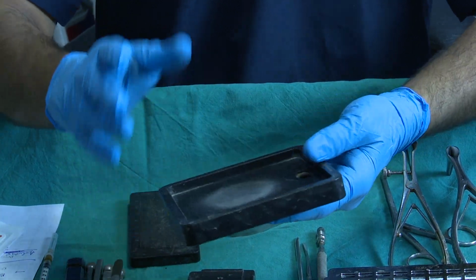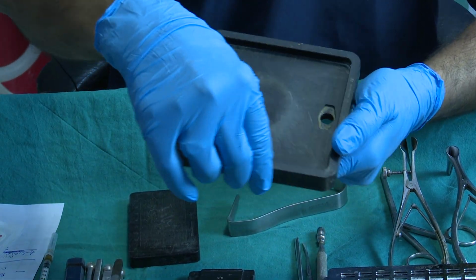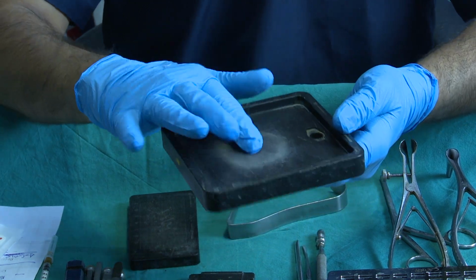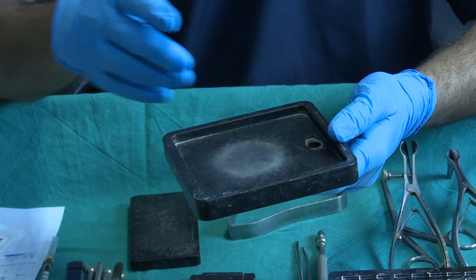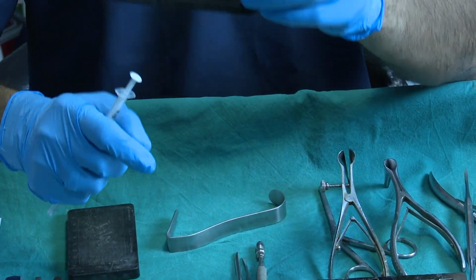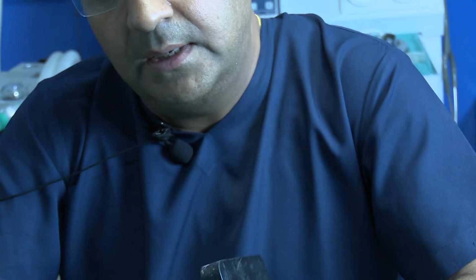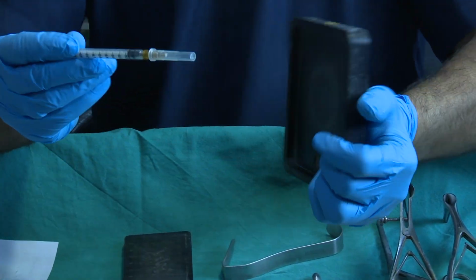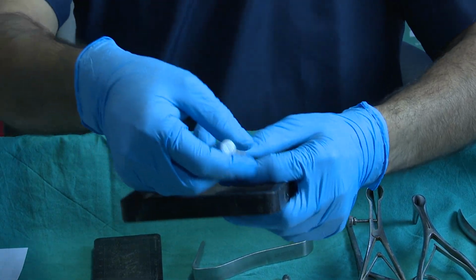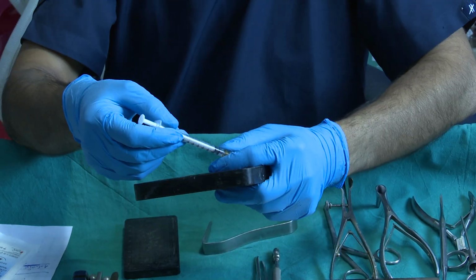When you make diced cartilage, this is good, because it has a border so the diced cartilage does not slip. Once you make good diced cartilage, there is another advantage: this board has a slot for the insulin syringe. Suppose this is your insulin syringe; it is very difficult to fill it after making the diced cartilage.